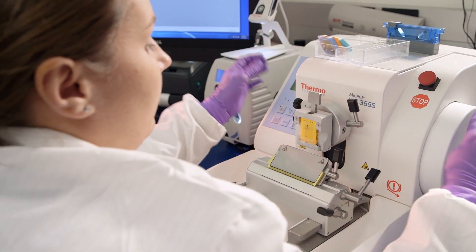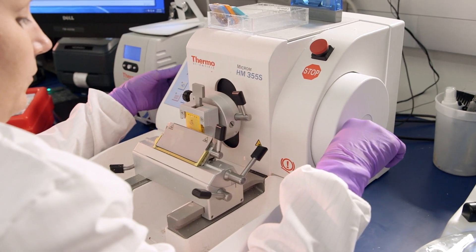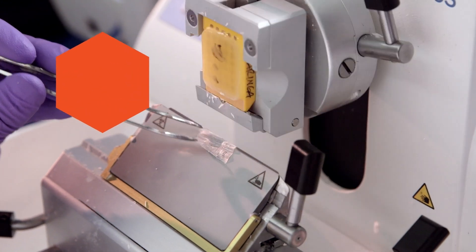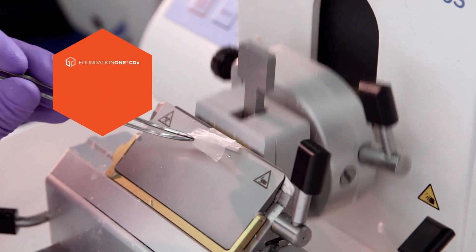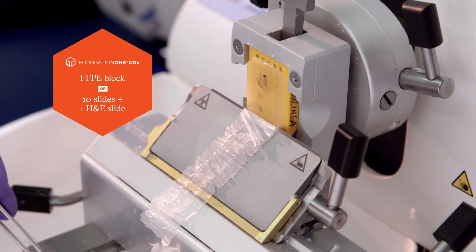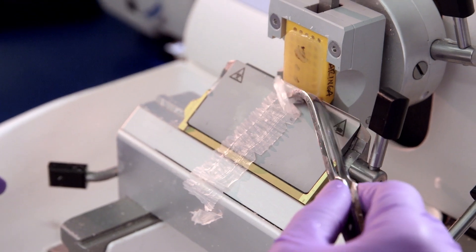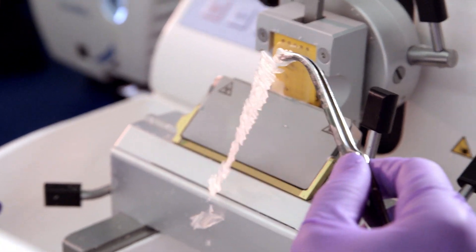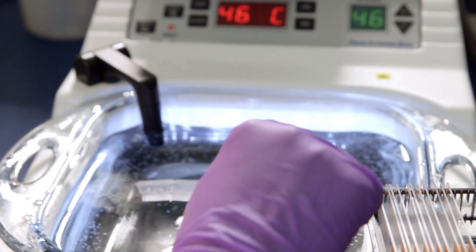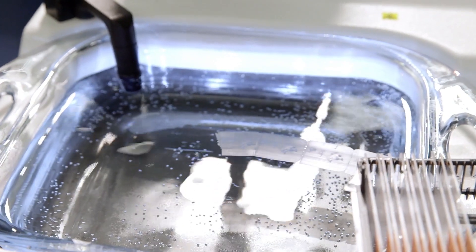An H&E slide from each case is required to ensure the submitted tissue meets our testing criteria for the selected assay. These H&E slides either come from the outside pathology lab or are generated by our in-house histopathology team by staining submitted unstained slides or by sectioning the FFPE blocks.